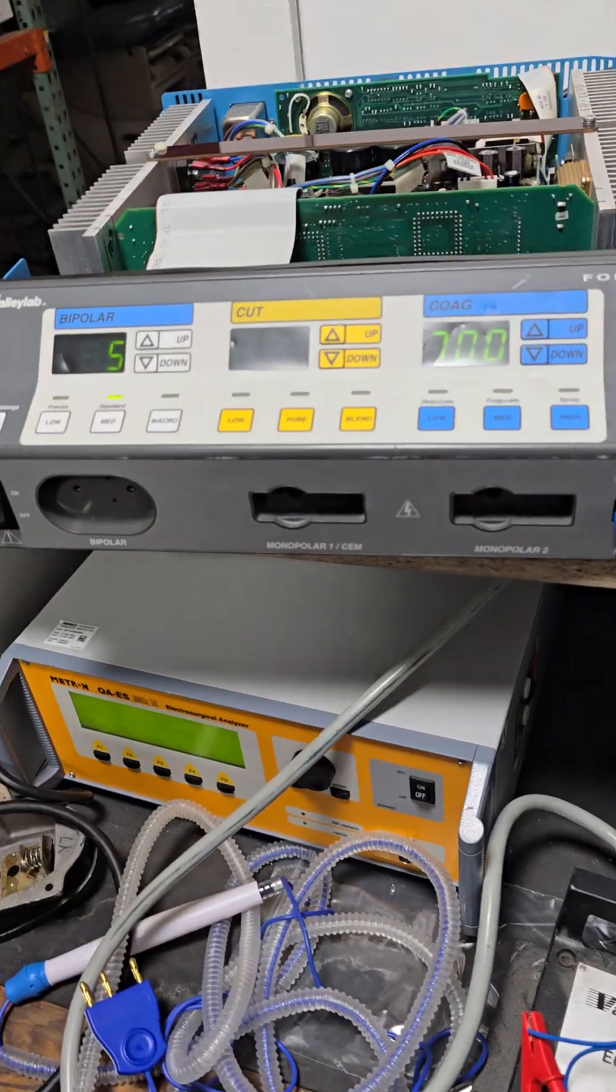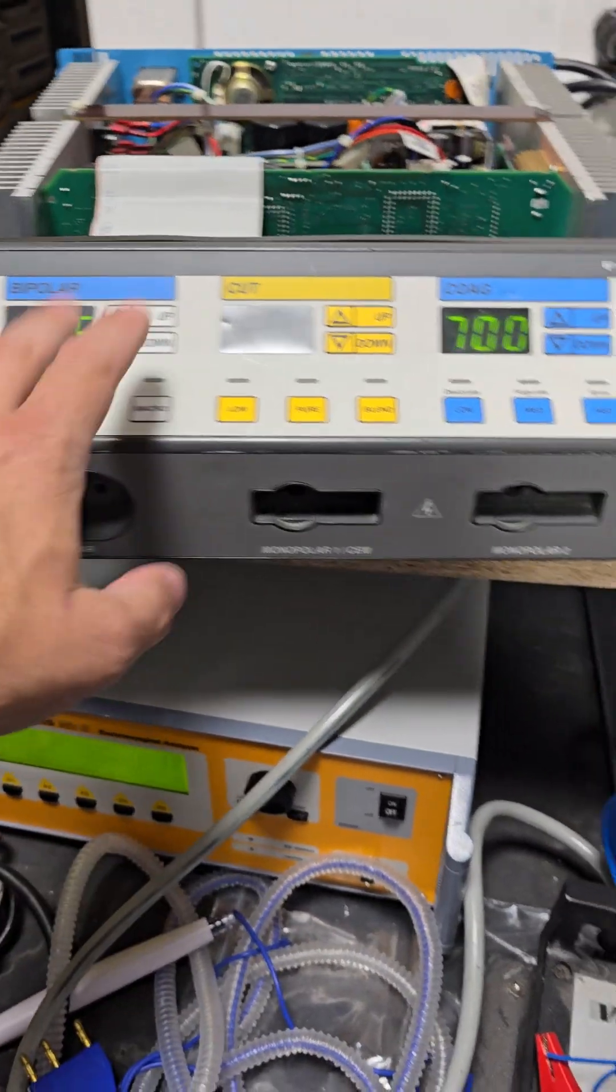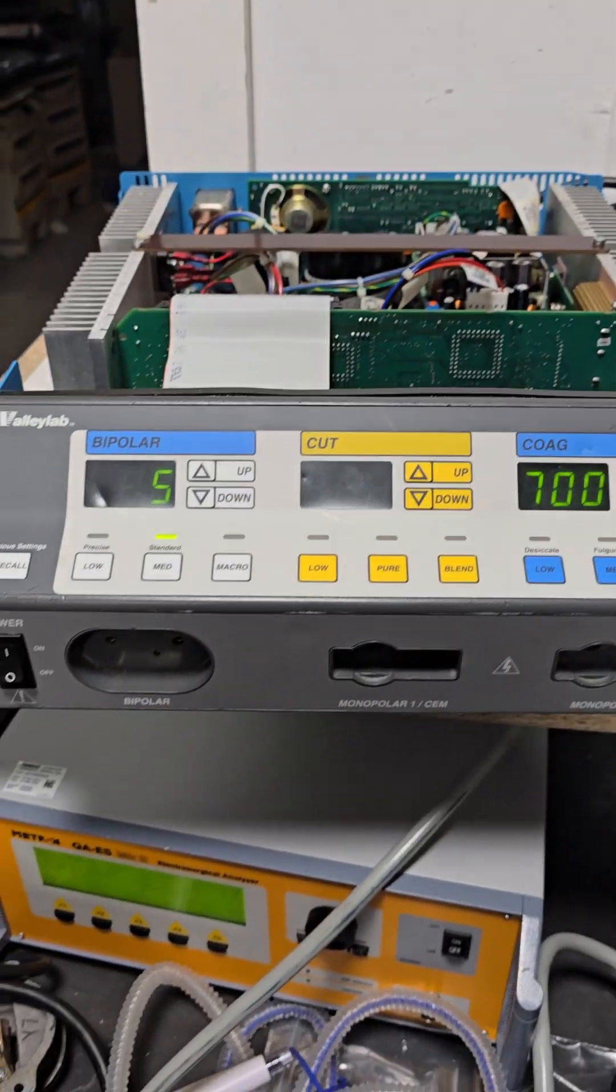This unit will not pass test 5, so we're not going to go that far, but there are the first four parts of the calibration window.